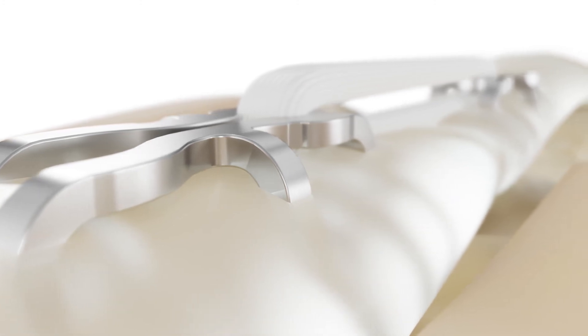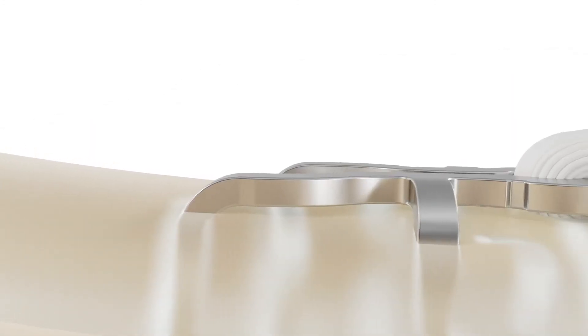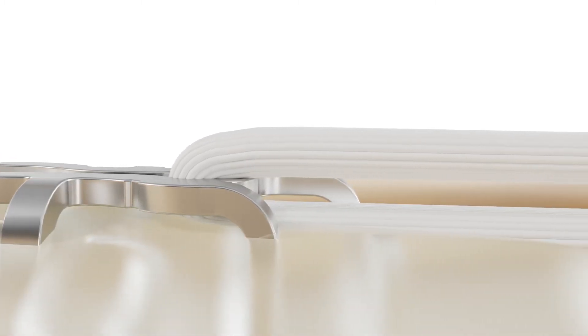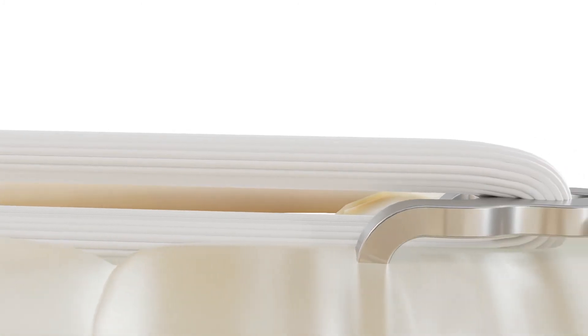The repairs produced with the Connections TR implant have been shown to be 2 times stronger, 3 times faster, and have 2.2 times less glide resistance than repairs produced with conventional suture techniques.